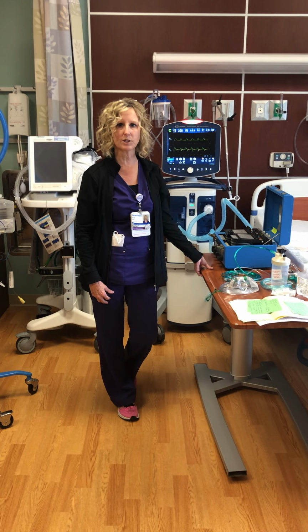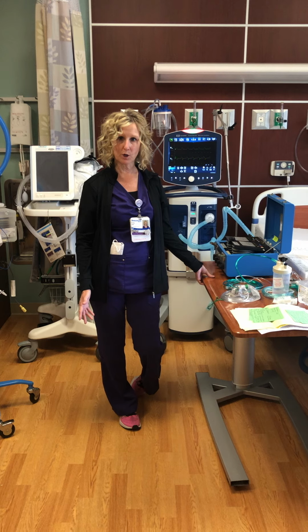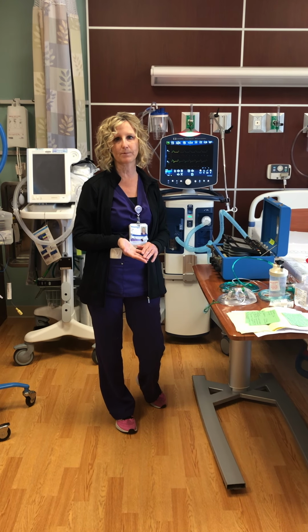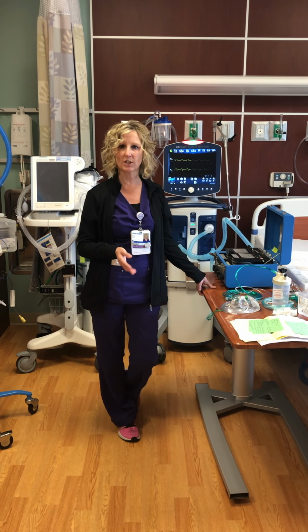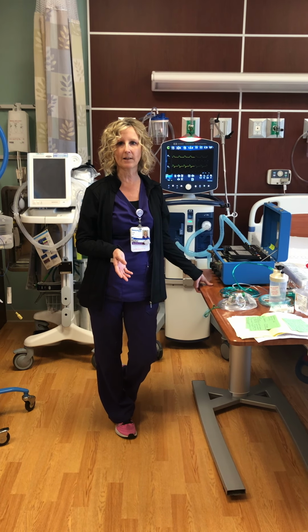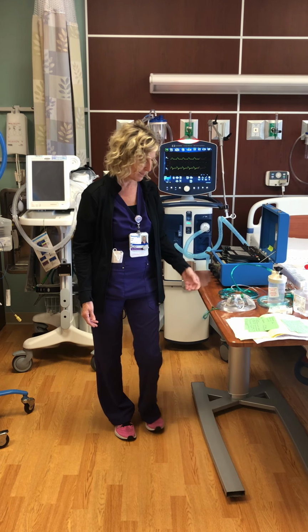I'm the lead therapist, and typically we do an in-service, in-person, going over oxygen devices, BiPAPs, AVAPs, and ventilator information. But with COVID, we're doing video presentations. So I'm just gonna go over everything pretty briefly and try to hit the highlights of things that I think ICU nurses really need to know.